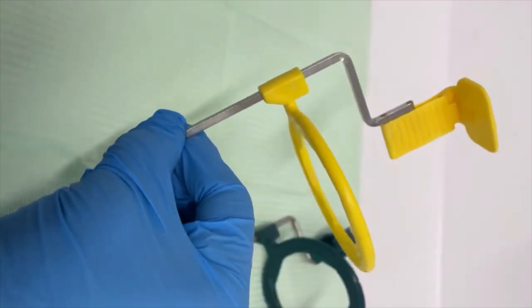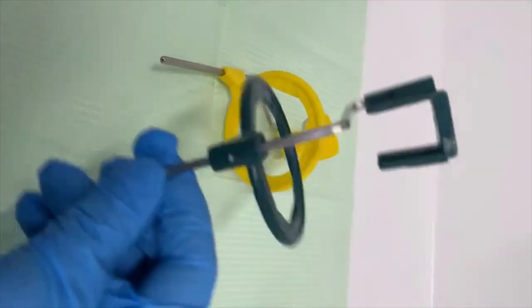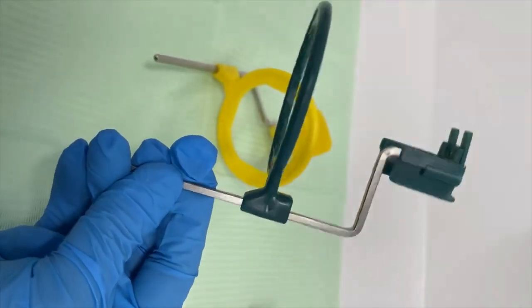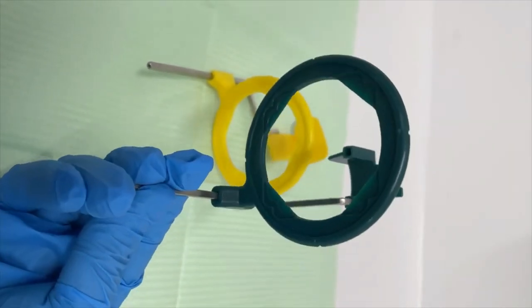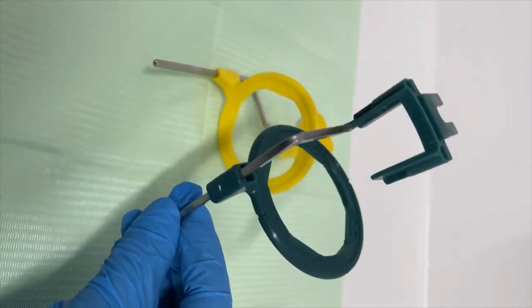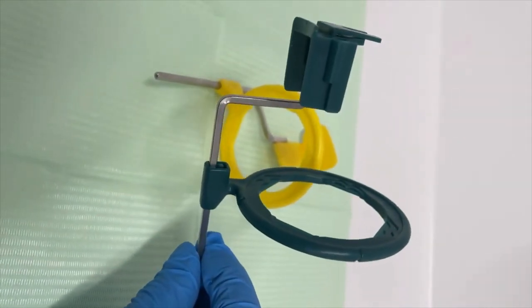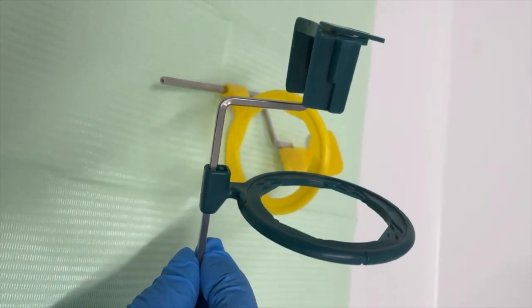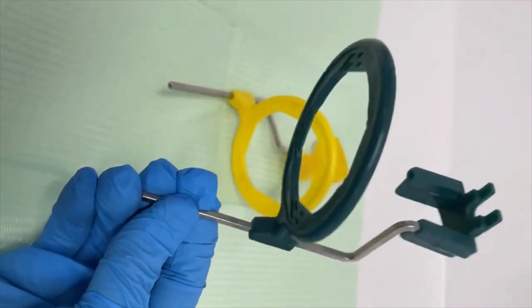And this is a holder for if a clinician is doing root canal treatment. They can use this one as an x-ray holder.